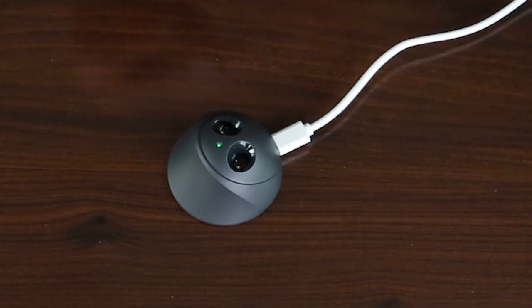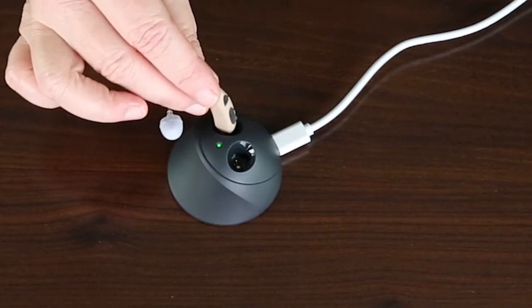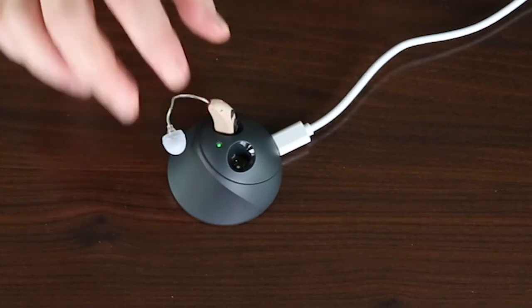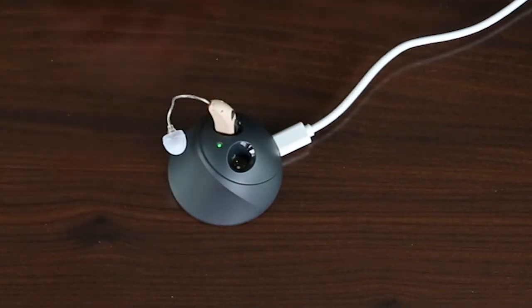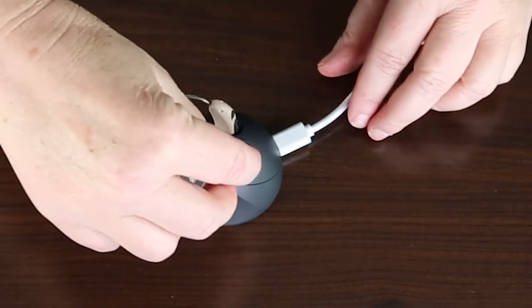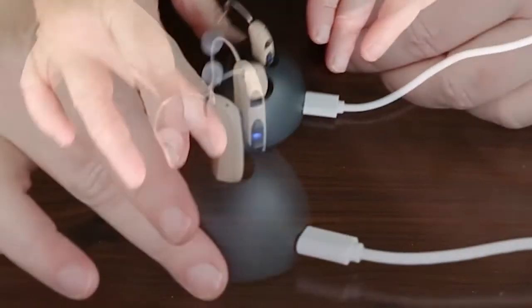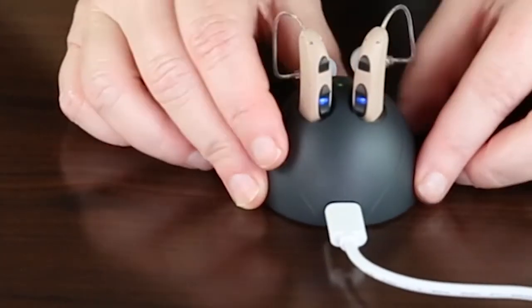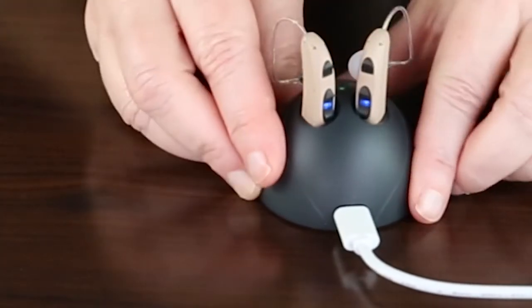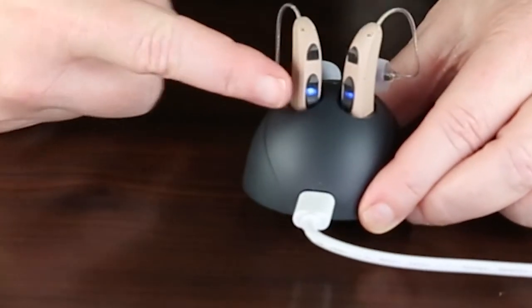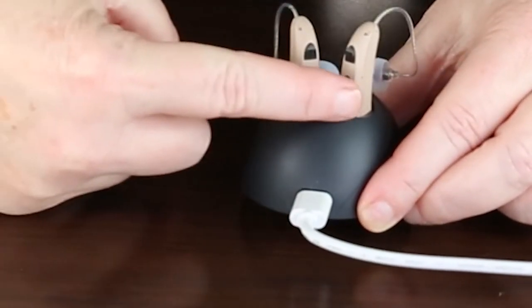To recharge your batteries, simply place them in the magnetic station. They will go in directly like that. Very simple to charge. If you have them in correctly and if they are charging, you will have a blue indicator light on the actual hearing aids, letting you know that they are charging.